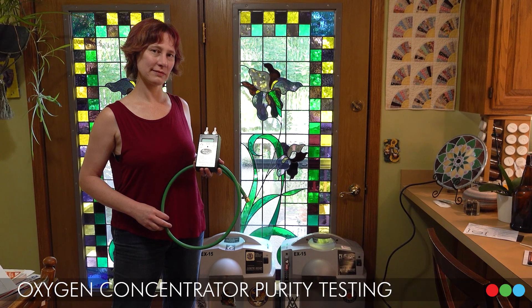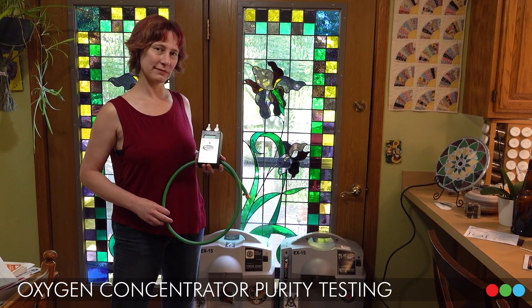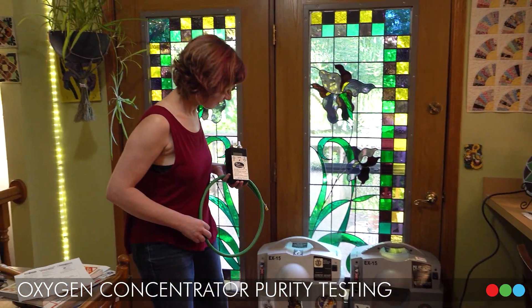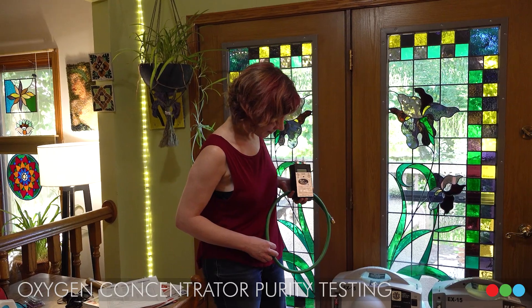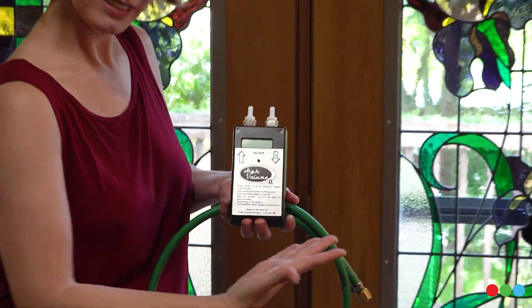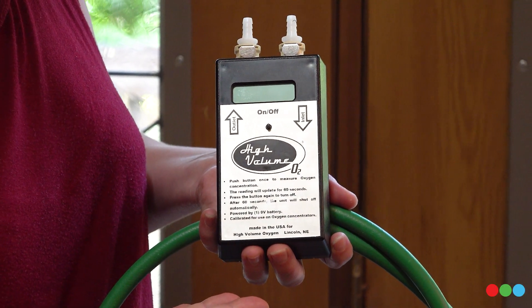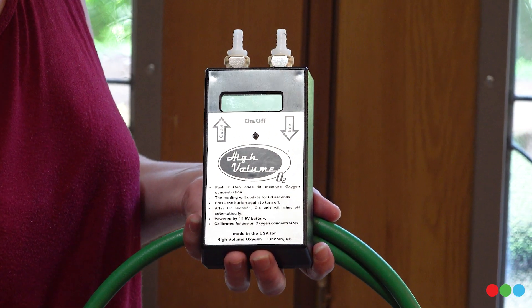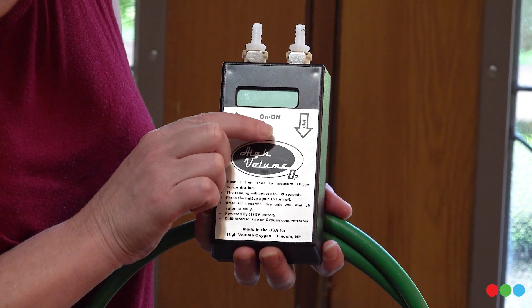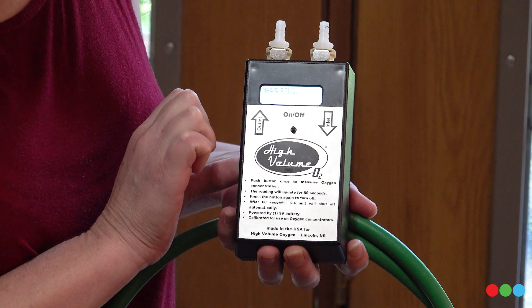What's up, here today to make a video about testing the purity of oxygen concentrators. Here my tester model Carrie is going to show us this high volume oxygen testing device, and I really like this a lot. If you've seen the previous video about these, I used an analog meter which is really nice.